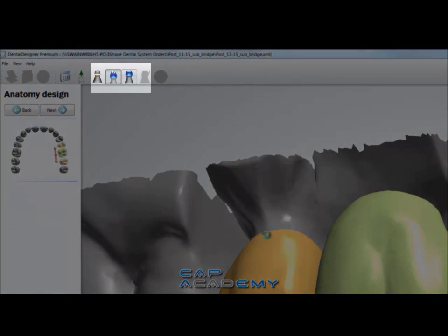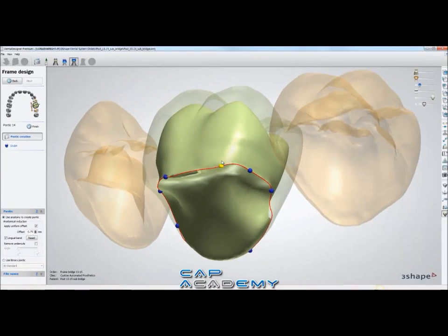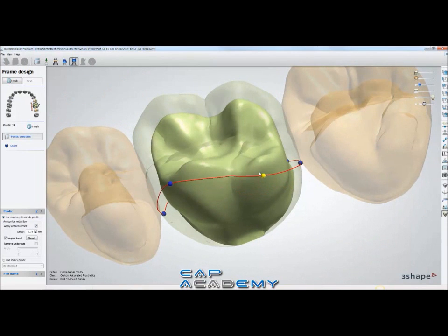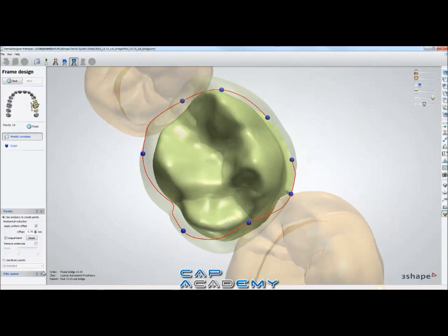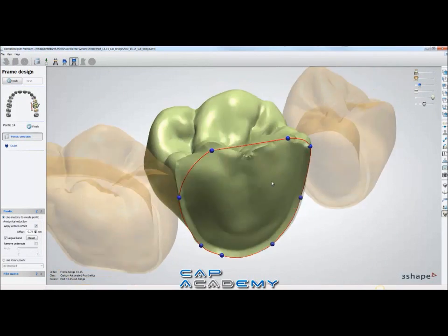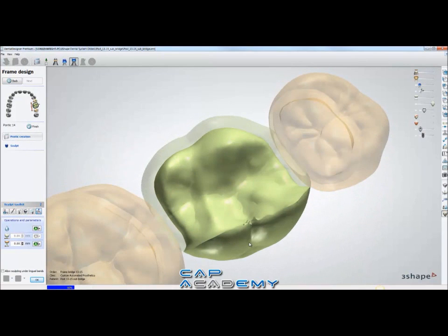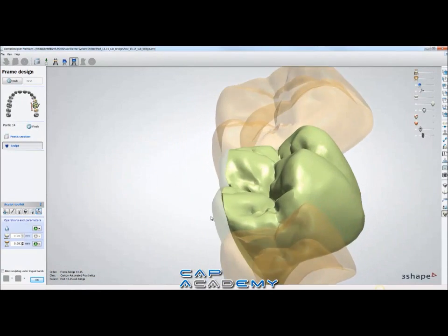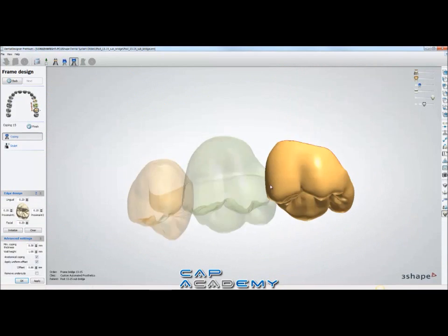The only difference is it's anatomical, so you have to do facial cutbacks on all three units. The pontic can be a little tricky — you want to make sure lingual band is selected when you do the pontic, and get the control points around. The trickiest thing with pontics is if you go too far it switches sides on you. So you kind of pull it over making sure the facial is the cutback. If I hit apply — actually this one was a little bugged out, so I'll use sculpt to apply. Notice it switched sides, so I'm going to tweak it back slightly. That is more ideal — pontics are a little buggy with anatomical features.